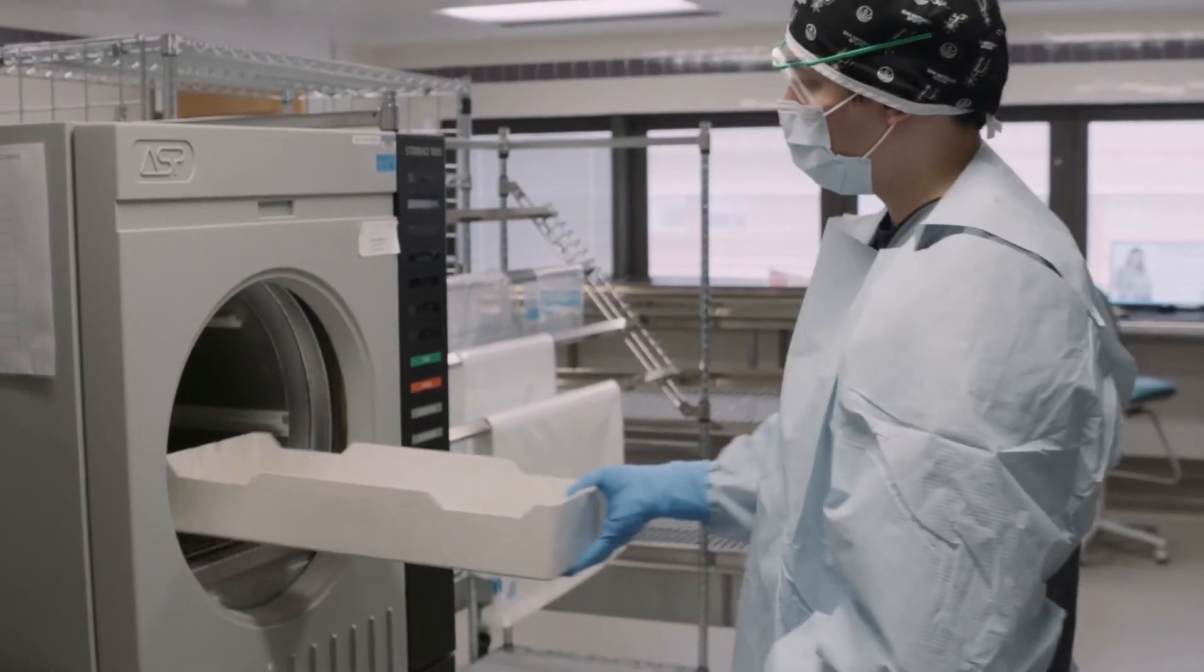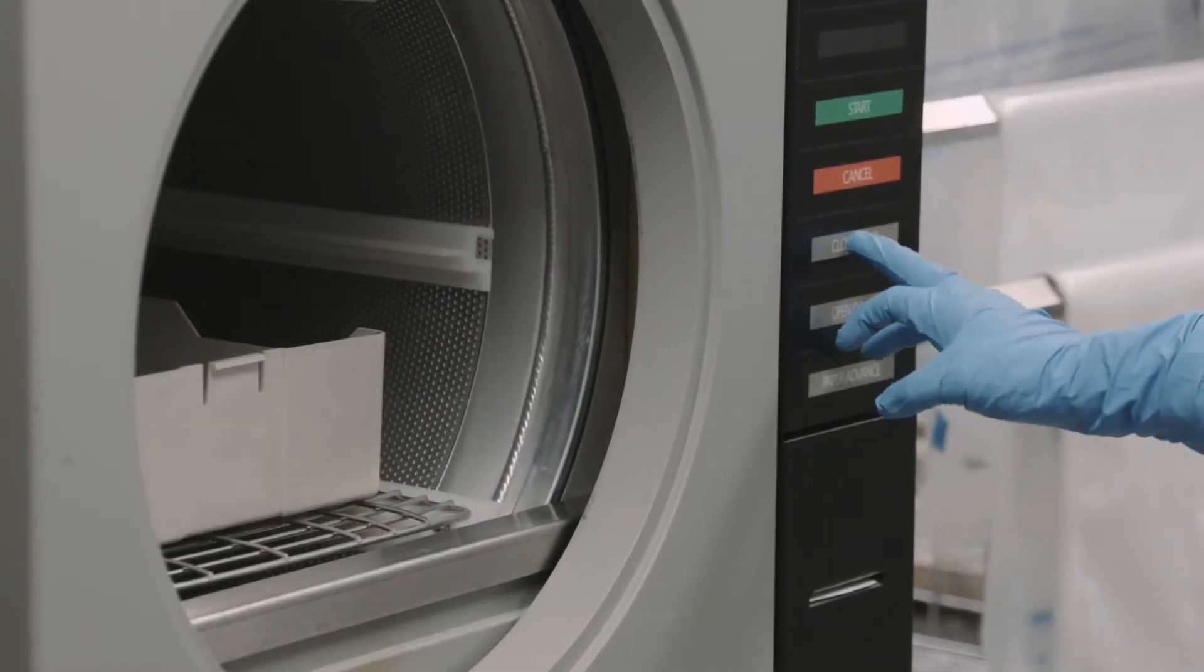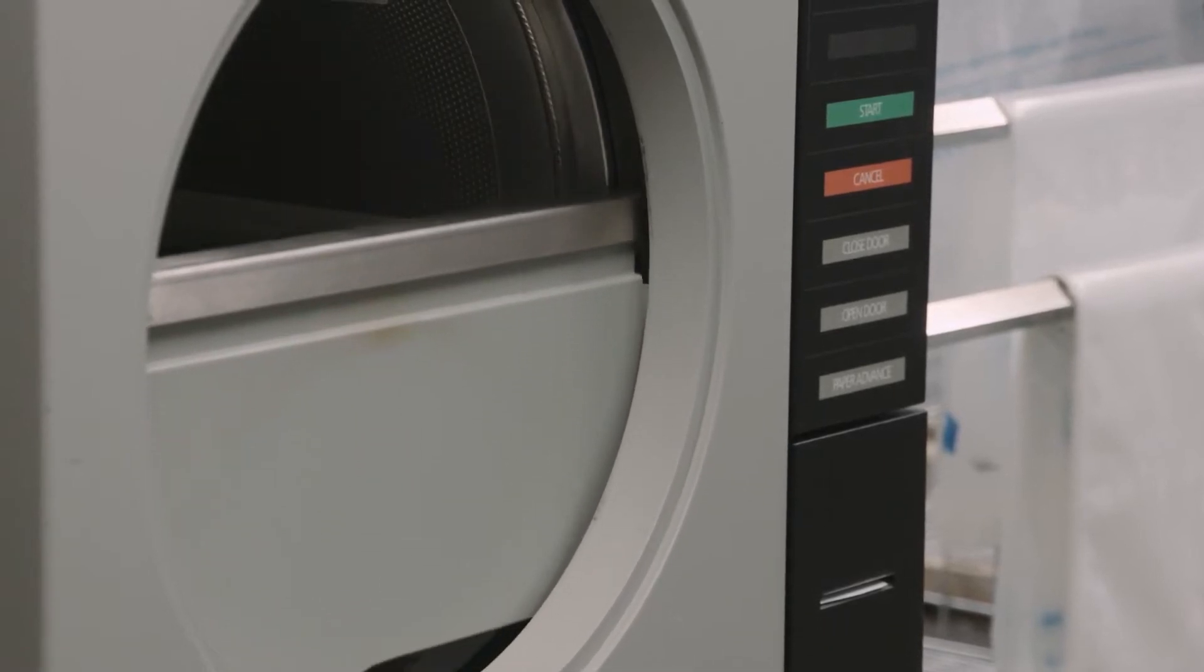There, the pouches with masks are placed in the STERAD sterilization machine, which bombards them with hydrogen peroxide gas.